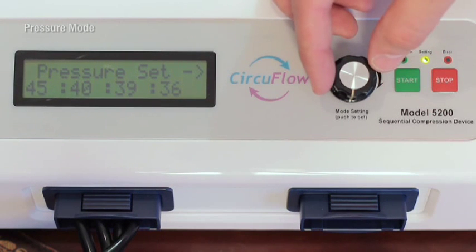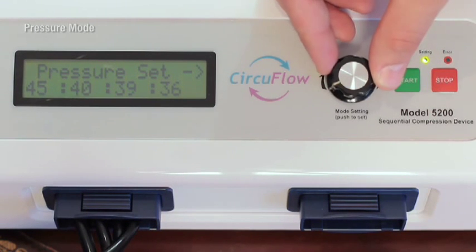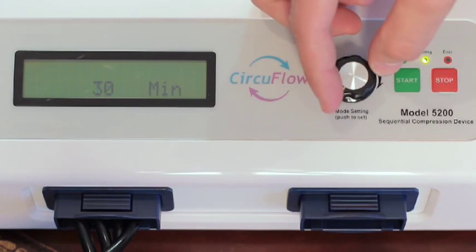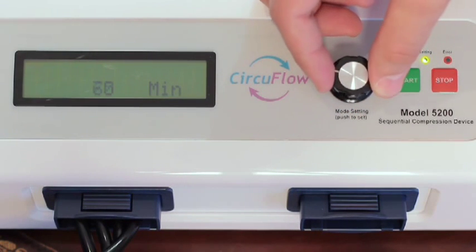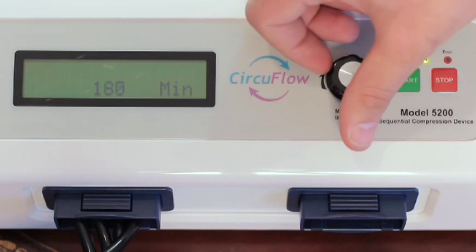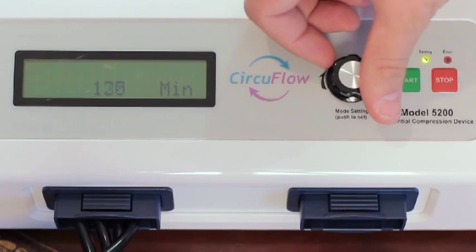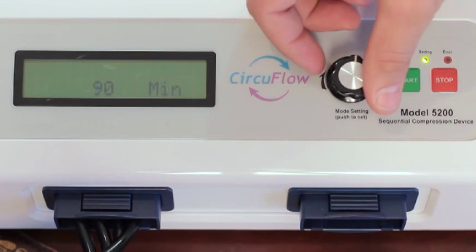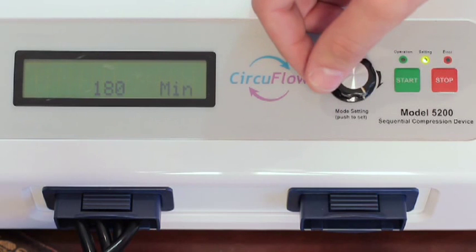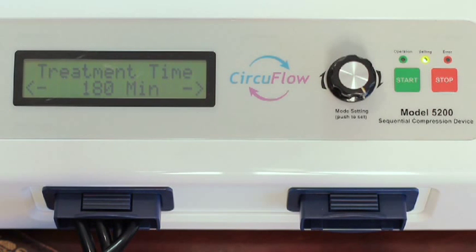To set the treatment time, turn the shuttle knob and select treatment time. Turn the shuttle knob to increase or decrease the time, which can range from 15 minutes to 180 minutes in increments of 15 minutes. Press the shuttle knob to confirm the treatment time.